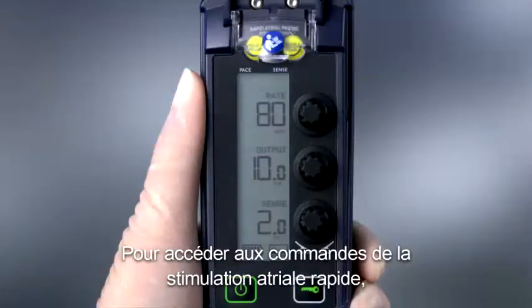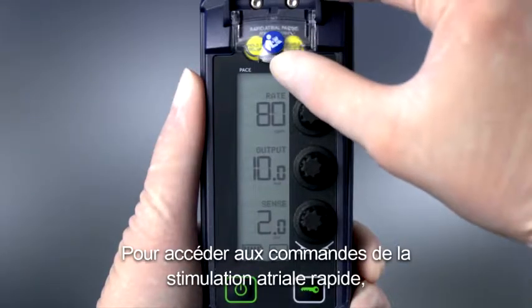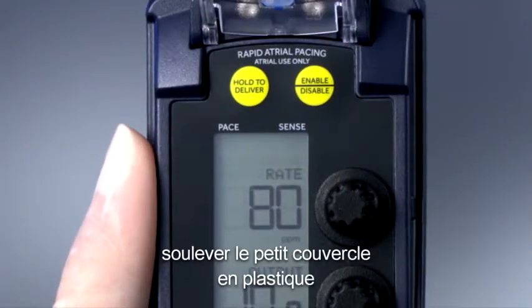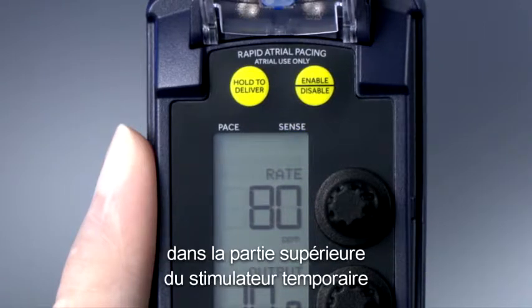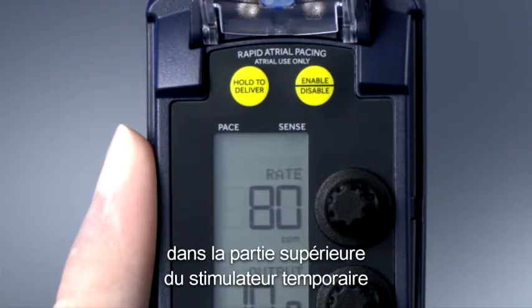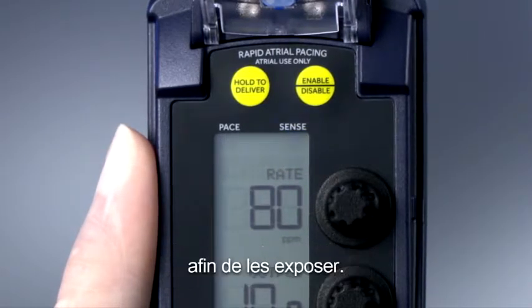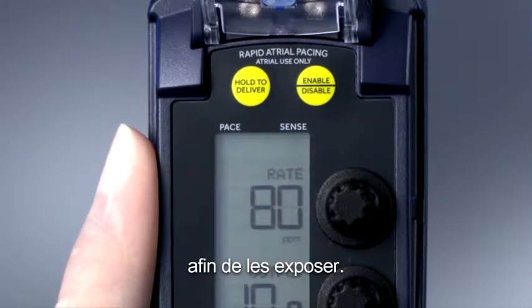To access the rapid atrial pacing controls, flip open the small plastic RAP cover at the top of the temporary pacemaker and expose the controls.